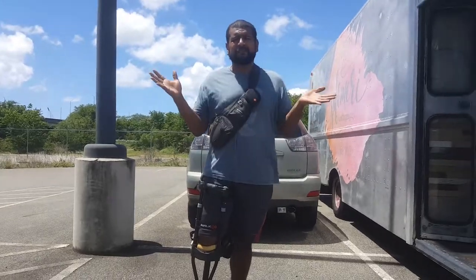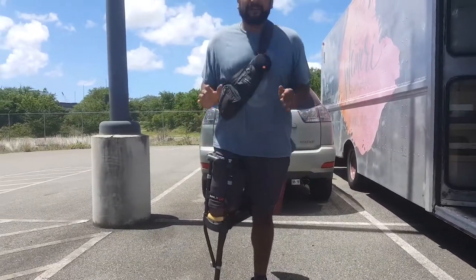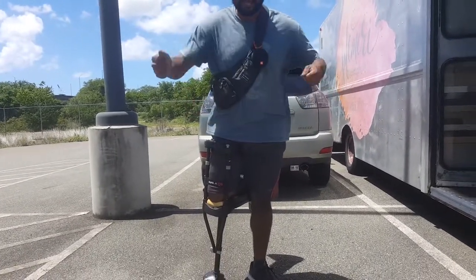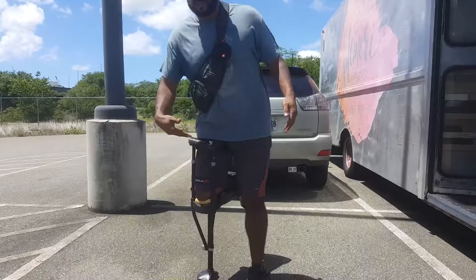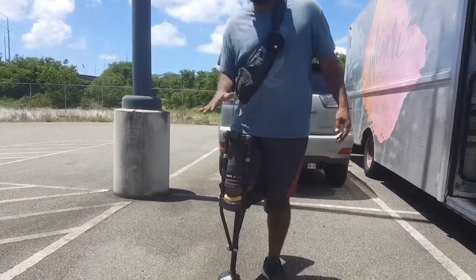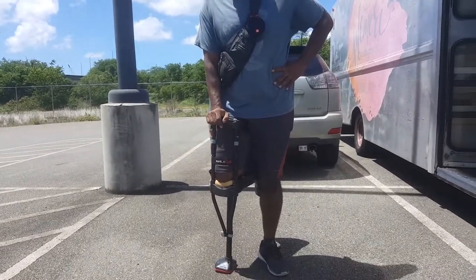For the most part, I love this because it gives me my hands back. Even when I stumble, I still have my hands available, so if I fall I can break my fall — rather than having crutches and having to juggle them or get stuck tumbling and falling face first. So this is really helpful, definitely worth $150, but obviously if you can get it cheaper or used, that's all you need.